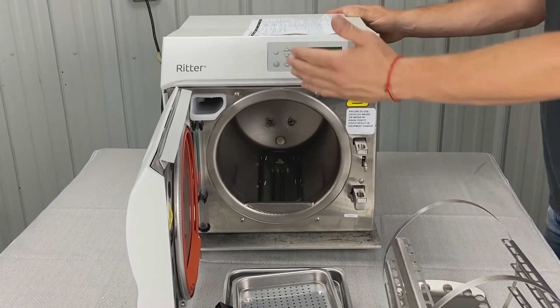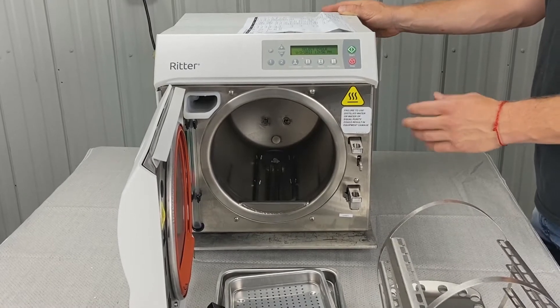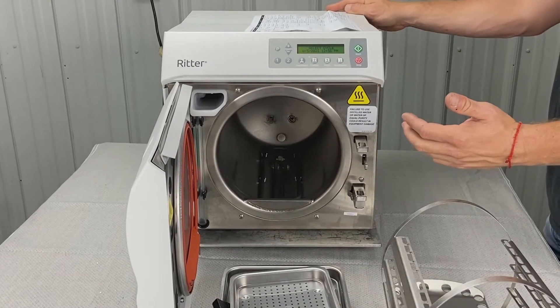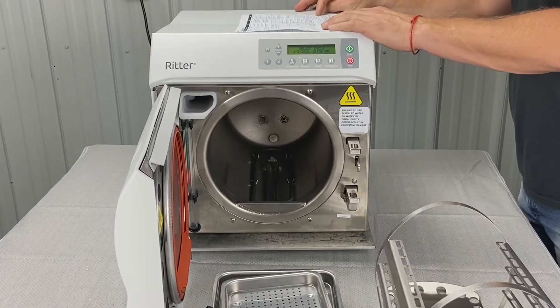The sensor could also be dirty, which has something to do with the grounding circuit. Before you do anything inspecting the ground circuit — to go into more detail, just give us a call at our free tech support line. We can help you through that. Clean and dry the level sensor.